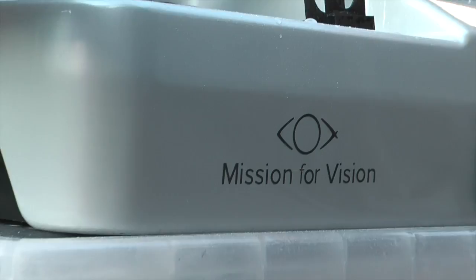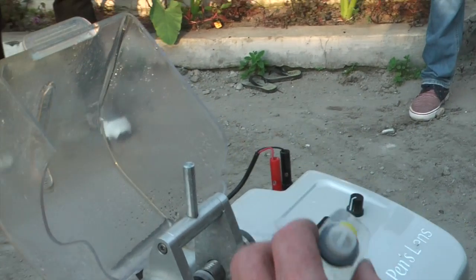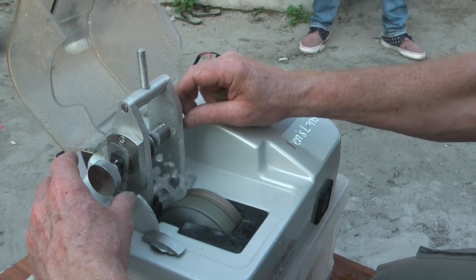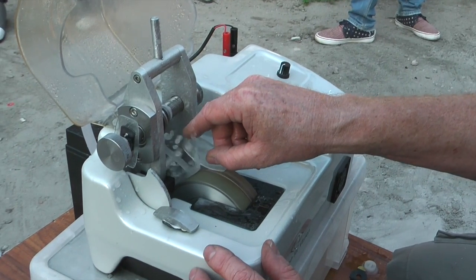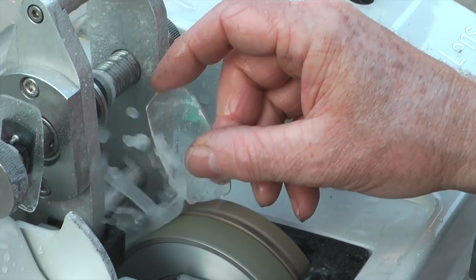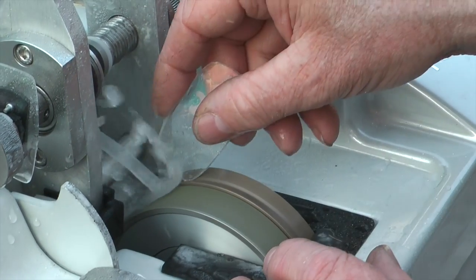So we take the lens off. You can see that it's quite a nice shape. The frame is here, so the lens is a little bit bigger than the frame, and once we put the bevel on, the lens will fit. To put the bevel on, you do need to have the lid open for this. This takes a lot of practice — this is perhaps the hardest part. But once you've done about half a dozen glasses, you get really quite quick at doing it. It's just learning how much pressure to apply according to the thickness of the lens. So we just keep doing that until we arrive at the right size.